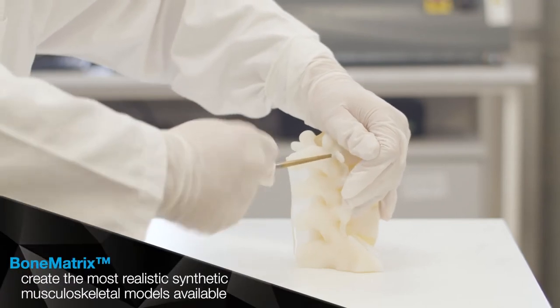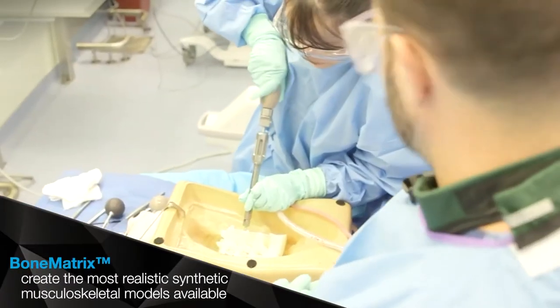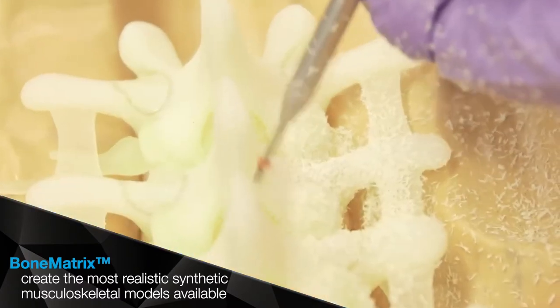Experience the density properties of human bone, mimic porous bone structures, fibrotic tissues, and ligaments.